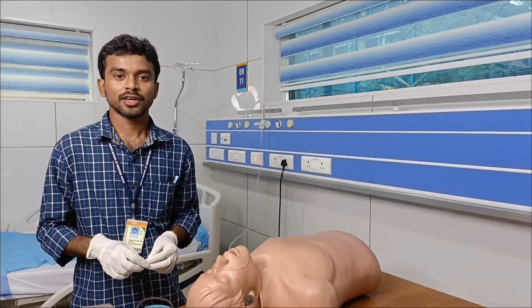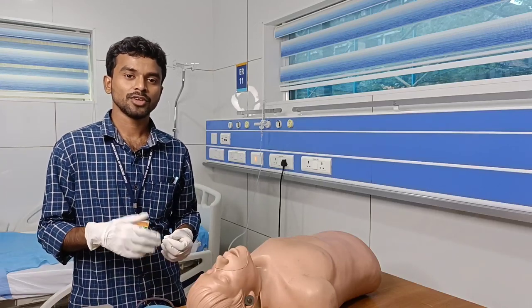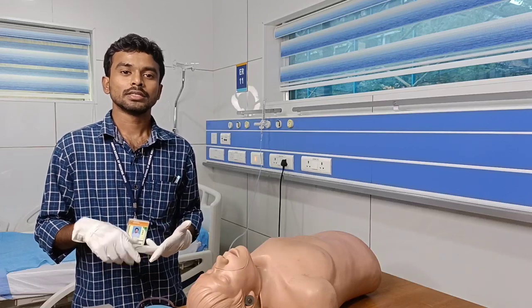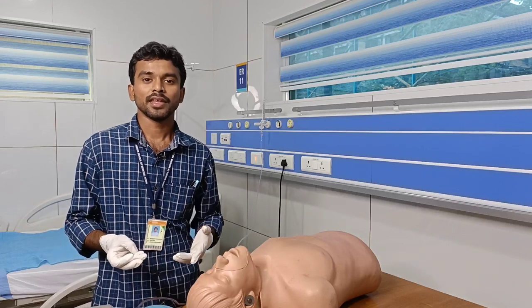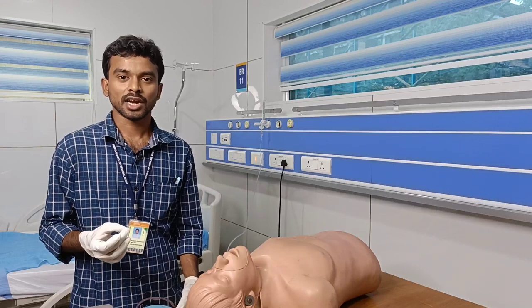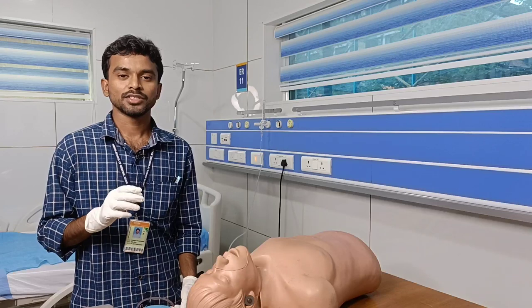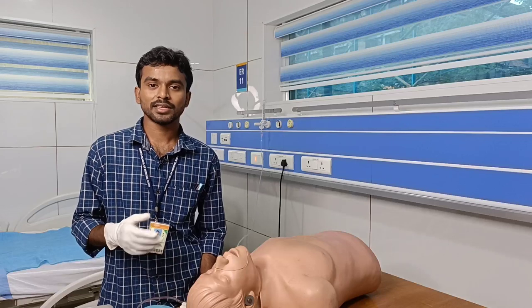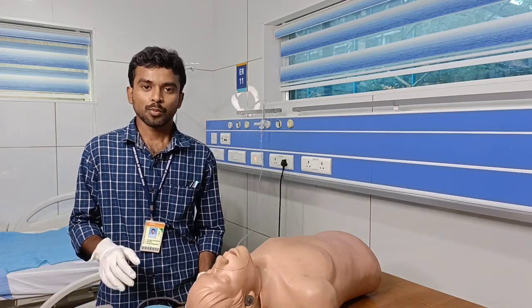The predictors of difficult bag mask ventilation include upper airway obstruction, history of snoring, edentulous patients, obese patients, patients with a short neck, patients with facial injuries, and patients with a beard or mustache.